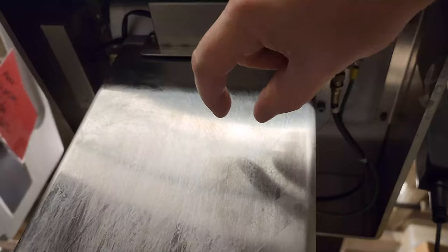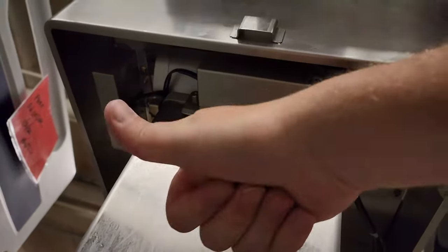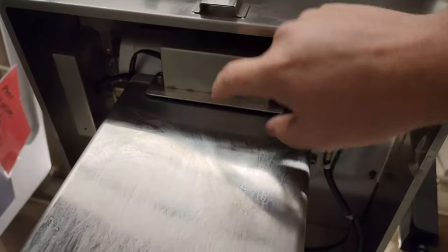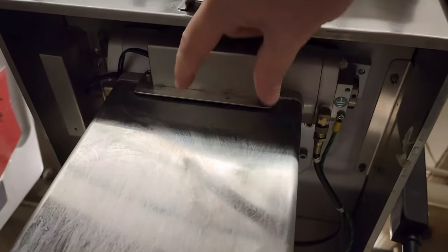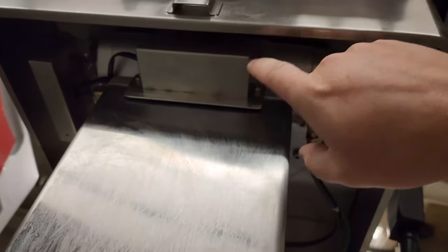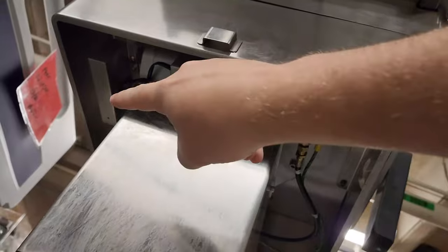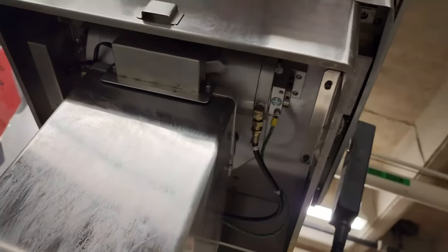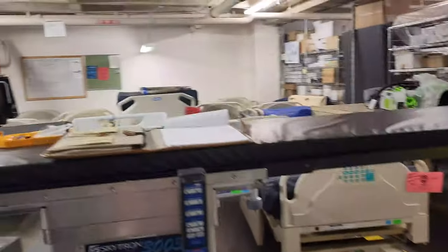The shielding has to come off — they're loose on both these tables, which means you'll need Loctite. You have to go in and adjust the width of both micro switches and then adjust the height of the micro switches, which changes their engagement on the cam and adjusts where the table tilts. We got it finally calibrated — it took several attempts with one person working the hand control while I adjusted. We finally got it calibrated and it's perfect.